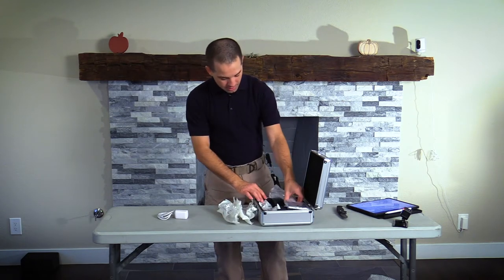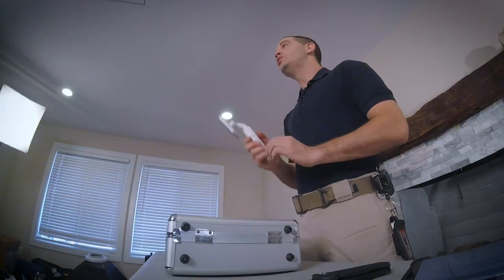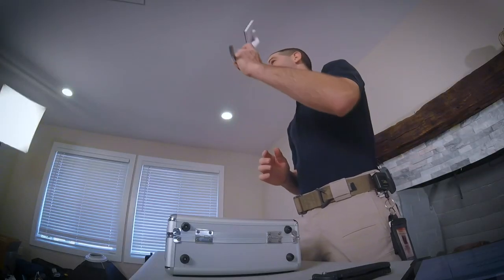And then here it is, the Clearview Video Laryngoscope. So why should you be using a video laryngoscope versus a manual one? The reason is because your chance of first-pass intubation will be much higher with a video laryngoscope compared to a manual laryngoscope.